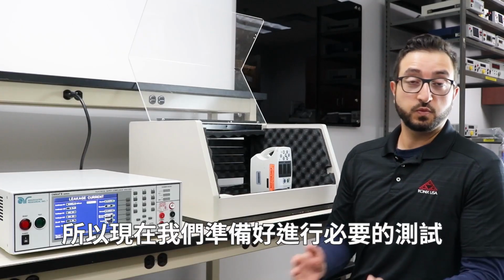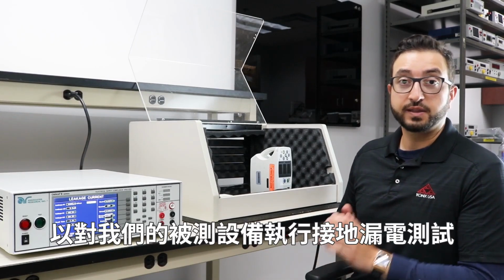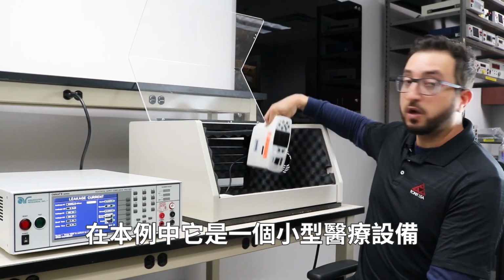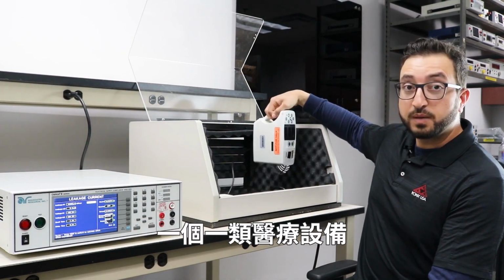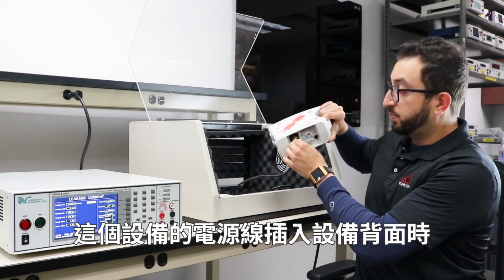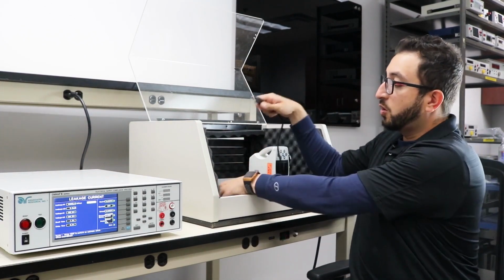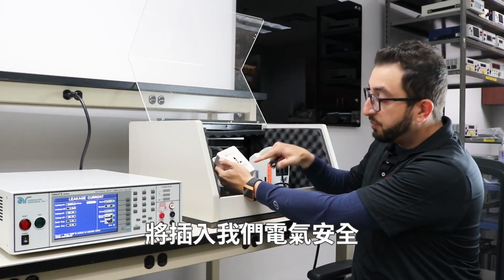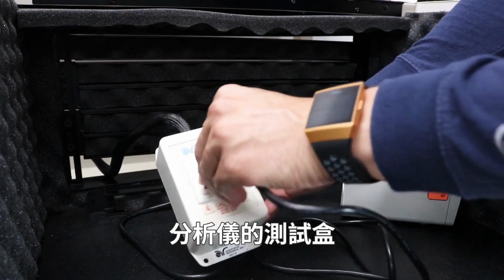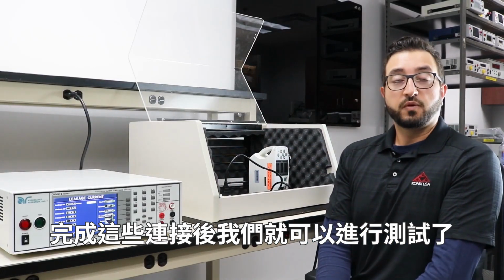Okay, so now we're ready to make the necessary test connections for performing an earth leakage test on our device under test, which in this case is a small class 1 medical device. I have the line cord of this device plugged into the back side of the device, and the other end of the line cord will be plugged into the adapter box of our electrical safety analyzer. With these connections, we are now ready to perform the test.